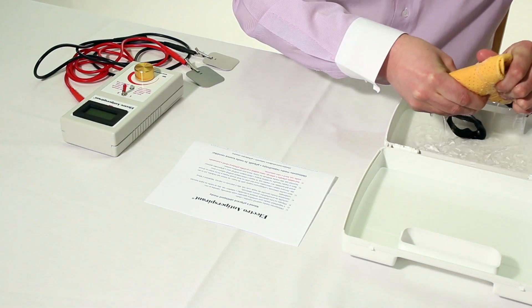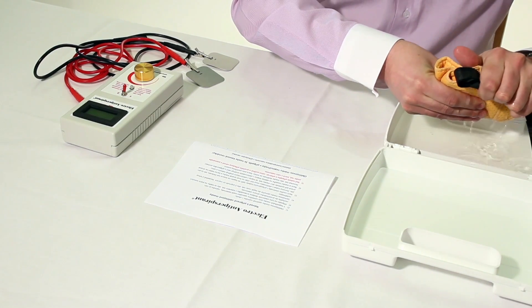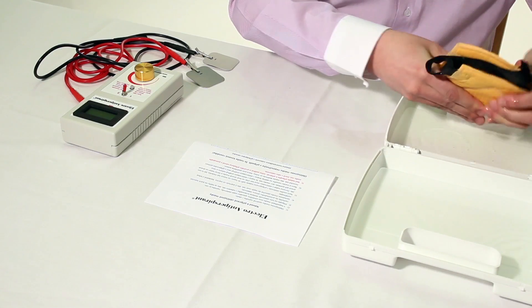Contraindications to electro antiperspirant face mask are metal dental braces and other metal implants in the head region.